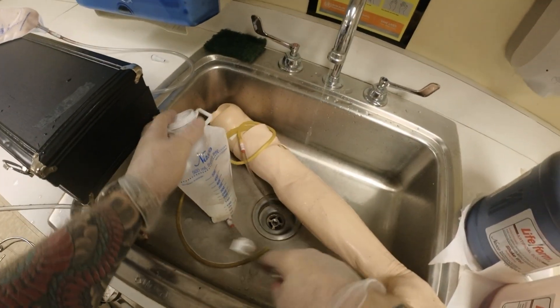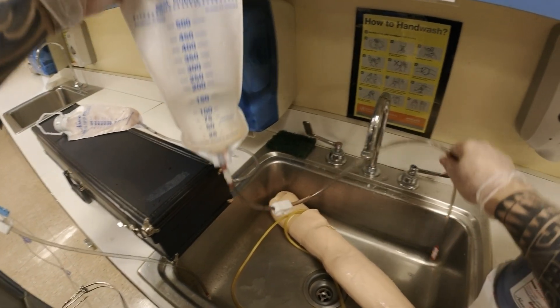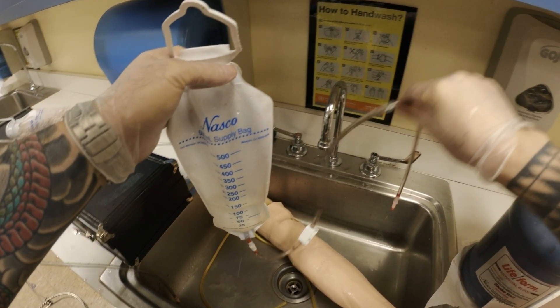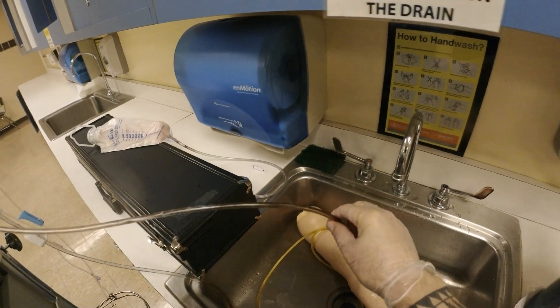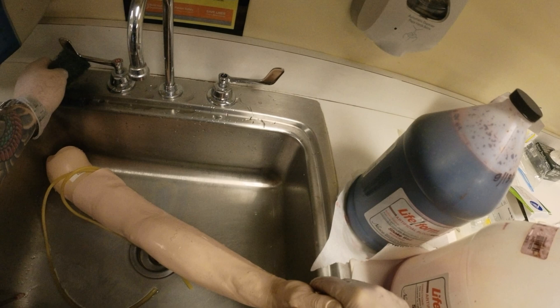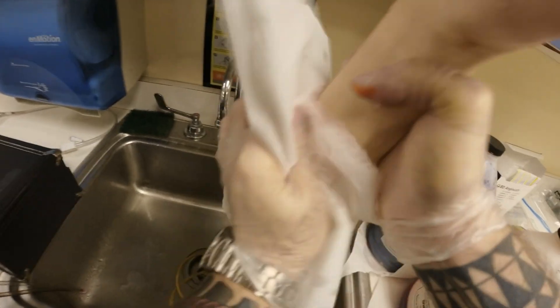Let it dry. My bag has infused fully so I want to clean it too. I take this, disconnect here, and let it drain out. This is done — I'm going to hang it. Now for this arm: if there was any blood, you can use the sponge to further clean it. I take some tissues or paper towels and put this upside down to facilitate all the drainage, then clean the arm.